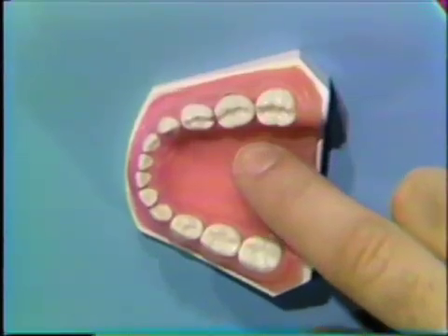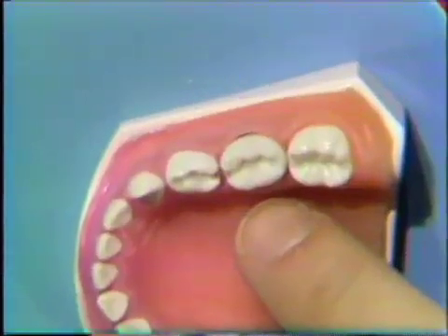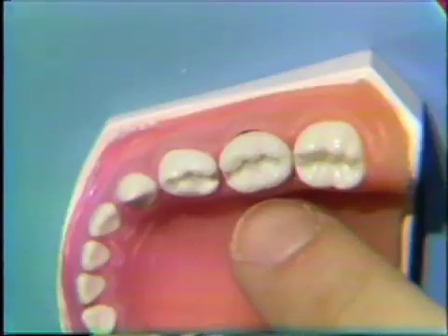A prepared tooth with a rubber dam clamp in place would not be a good candidate for the use of a Toffelmire matrix band, because the retainer handle would act as an impediment on the rubber dam clamp and would not be able to seat the band. And so, in pediatric dentistry, we use a spot welded matrix band.